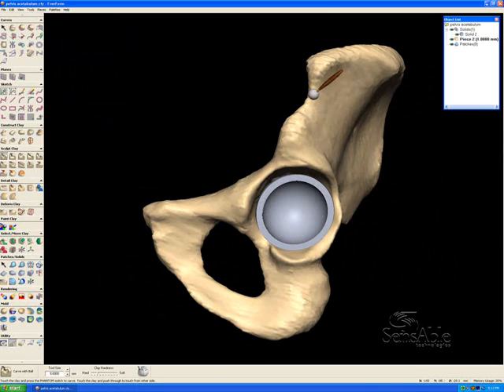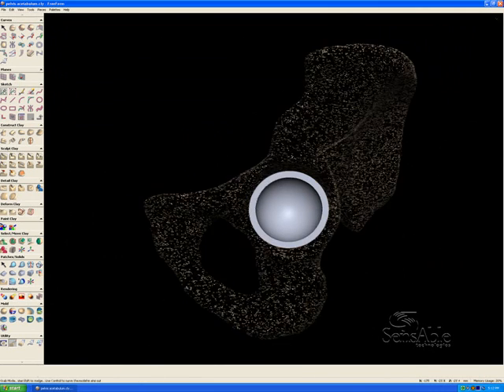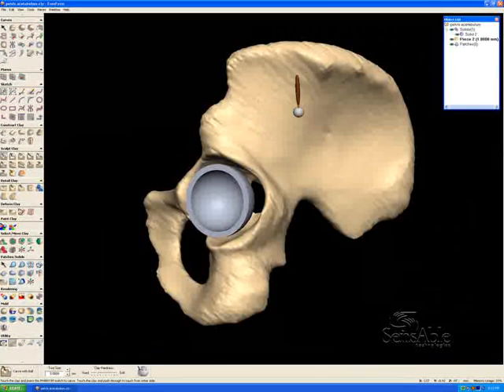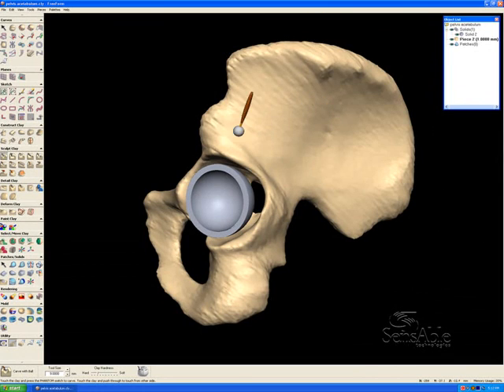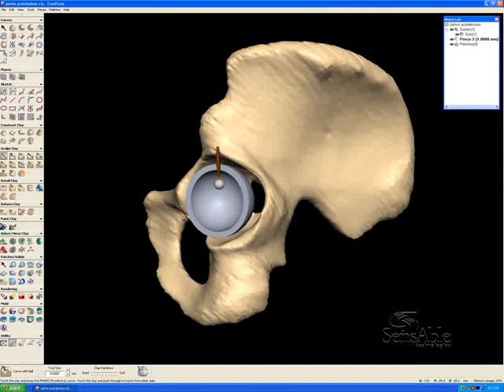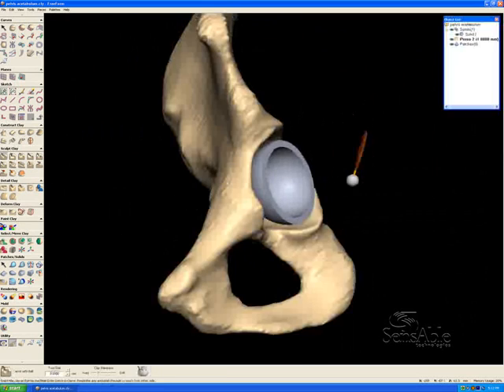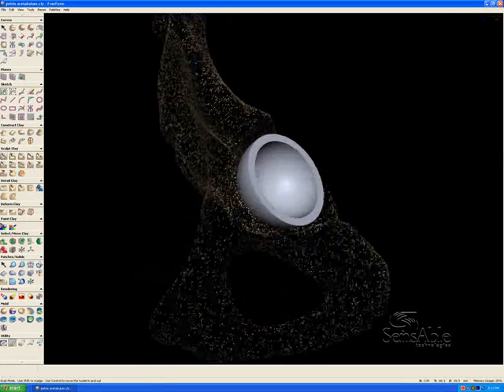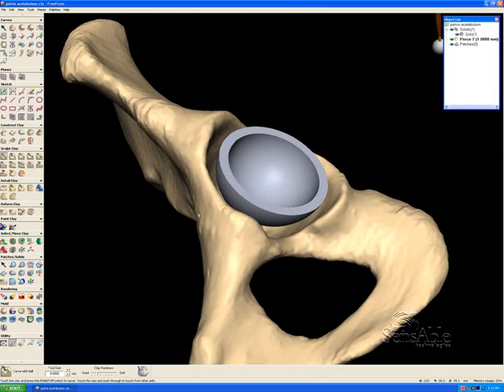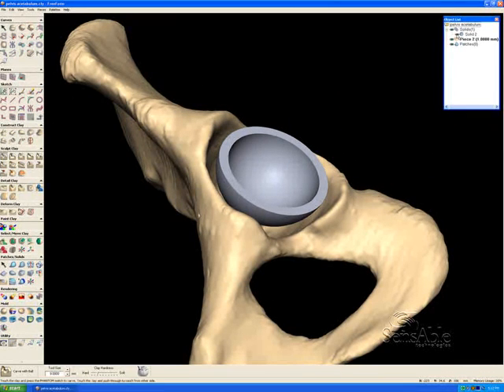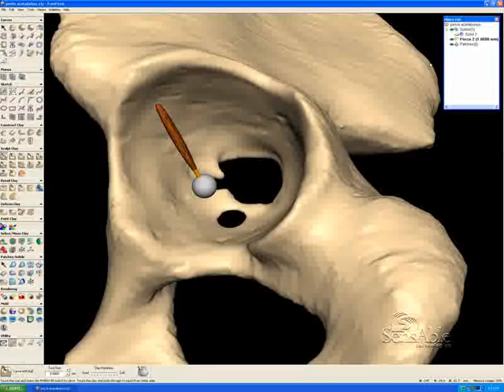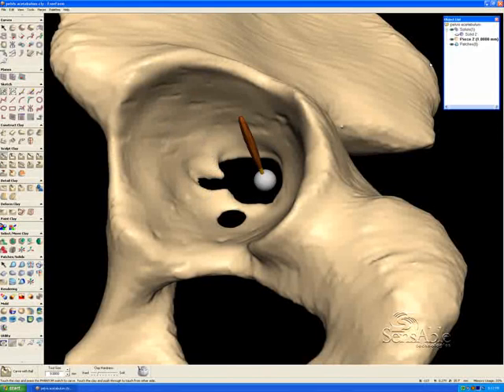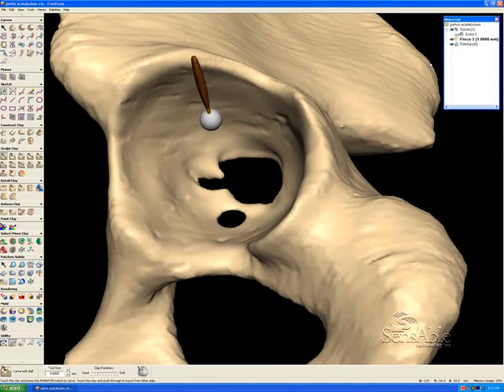On the screen here we have two items. The light tan one is the imported polygon file converted to virtual clay of a pelvis of a patient. And the purple body here, the cup, is an implant designed in another package and imported as a parasolid file. I'll hide the parasolid here in the object list for a second to show you the injury to the patient's pelvis here.